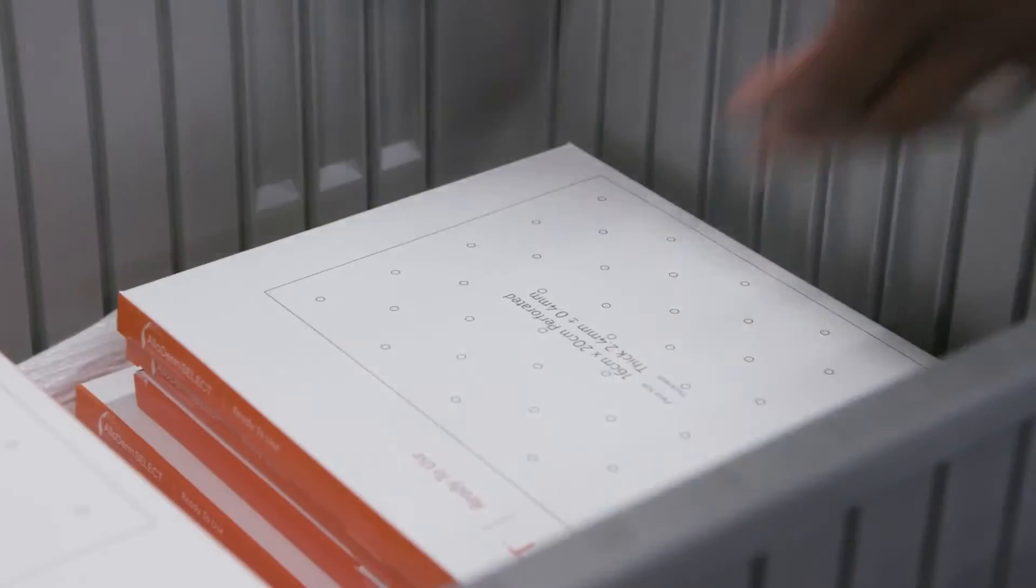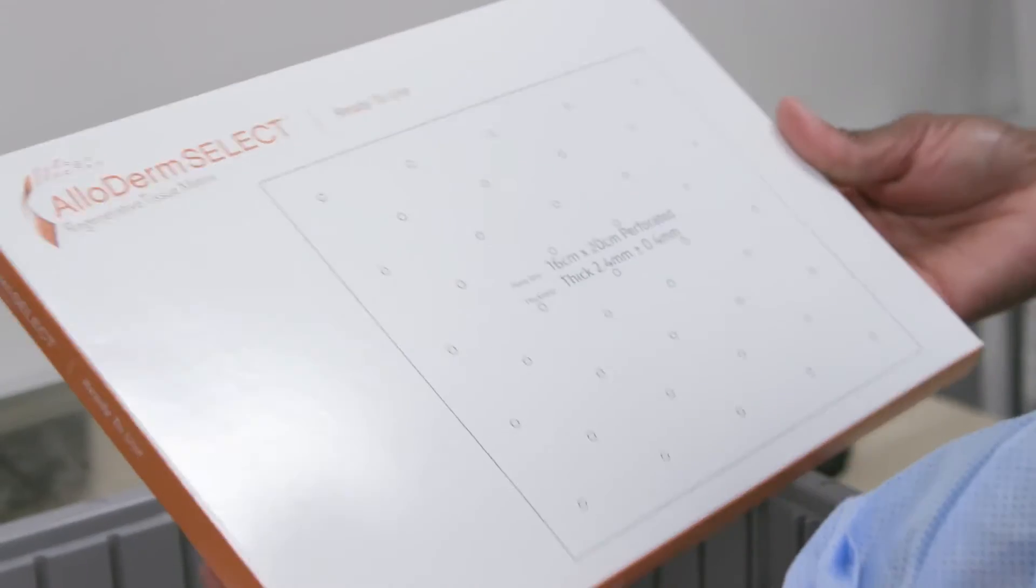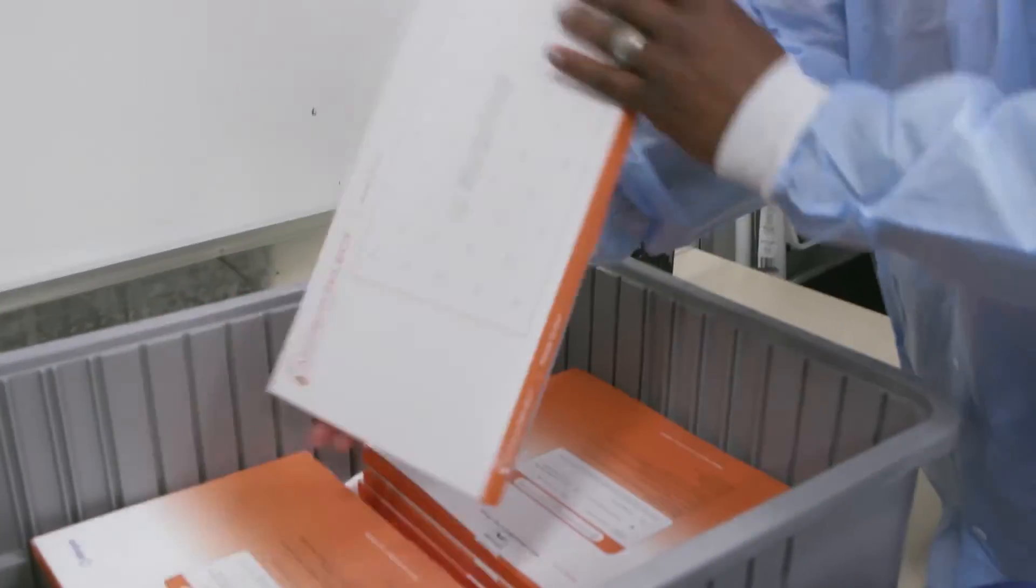The final inspection and finished goods teams are known as the gatekeepers because we monitor and manage everything that goes out. It doesn't go out to our customers or patients until it's met our requirements and all specifications.